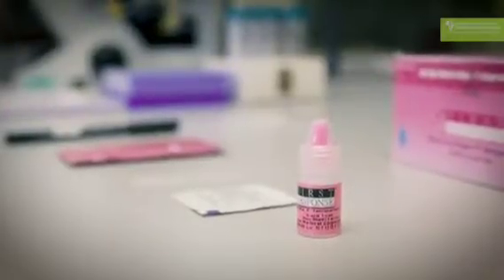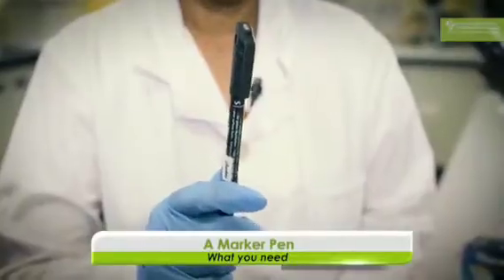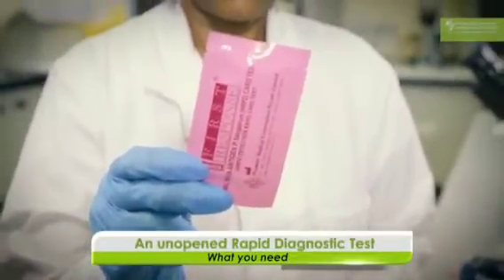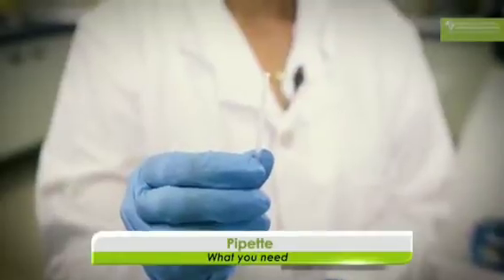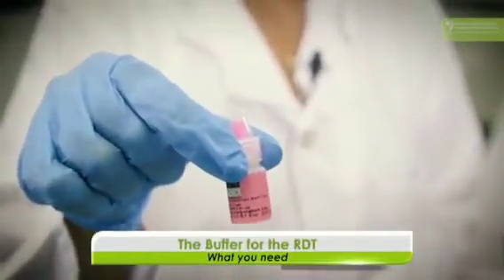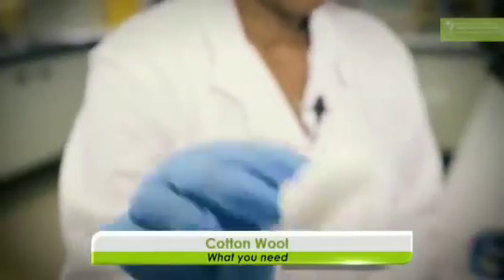The rapid diagnostic test consists of many different components. So you need a marker pen, which you can write on your RDT. You need an unopened rapid diagnostic test in a sealed foil pouch. You need to have the blood pipette for the sample. You need to have your alcohol swab, the buffer for the RDT, the lancet, and some cotton wool.